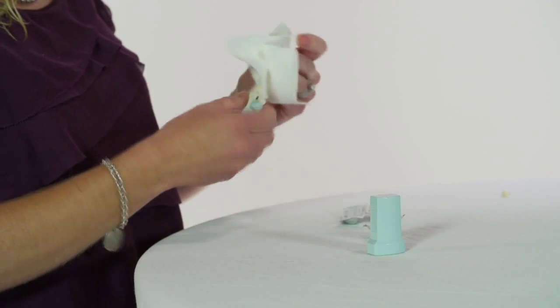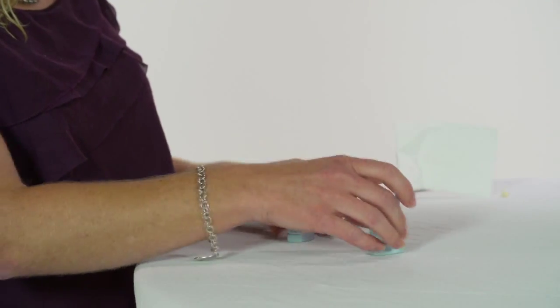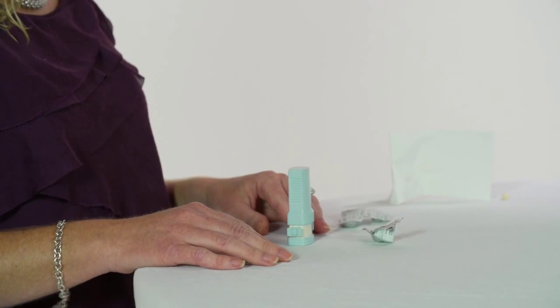If the mouthpiece is wet, wipe it with a clean, dry cloth. Finally, replace the mouthpiece cover.